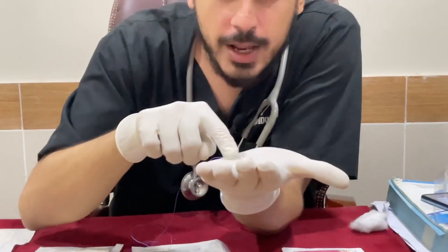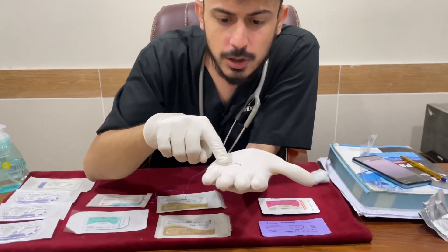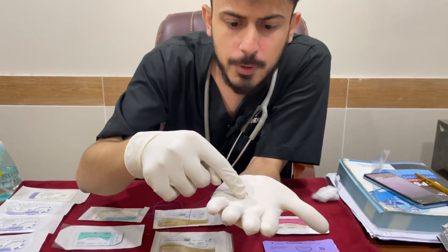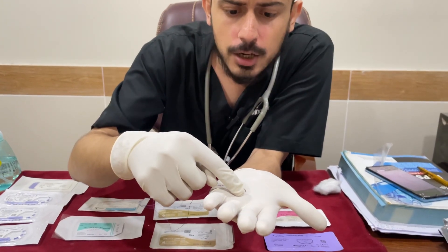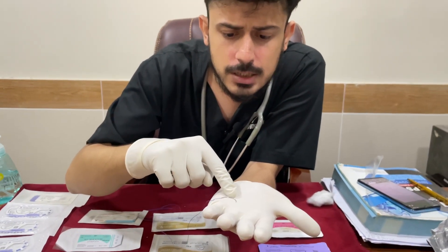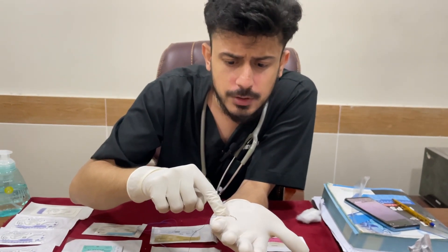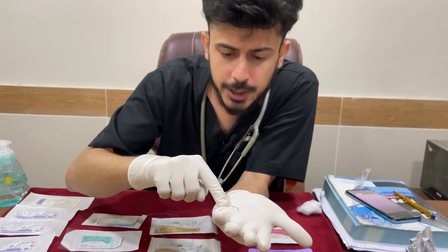Now, there are three parts of the needle. This is the tip of the needle, known as the tip. This is known as the body of the needle. And this portion where the thread is attached is called the swage end of the needle.